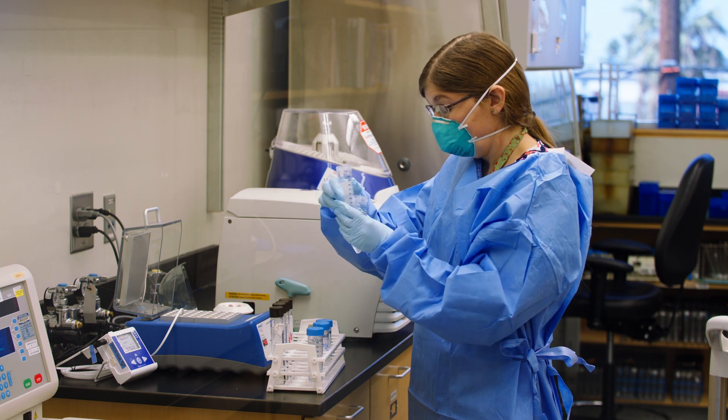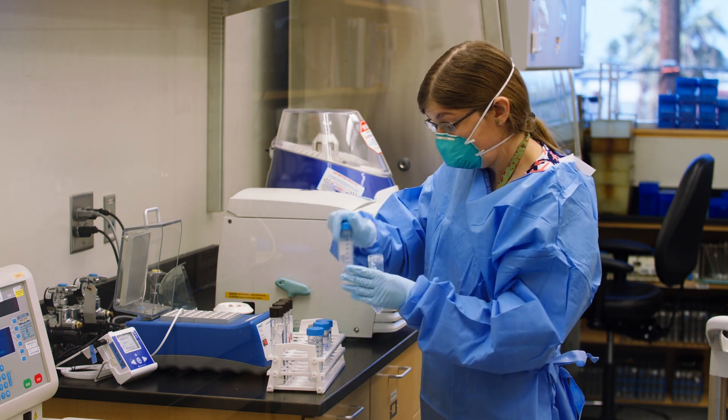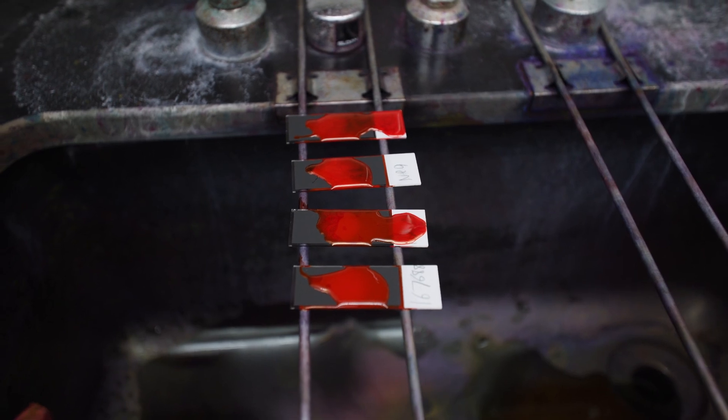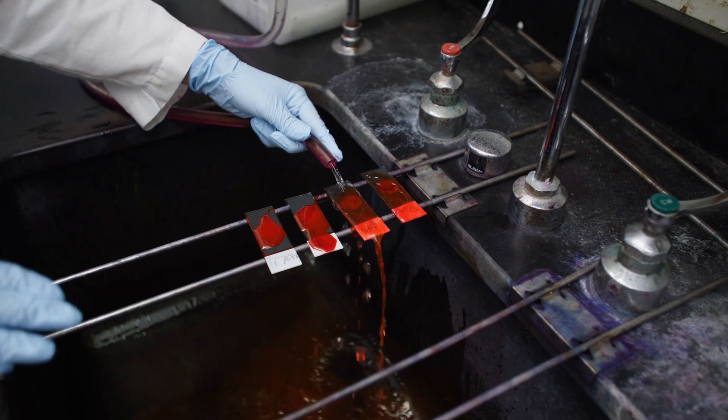Today, Bailey will perform three tests on these samples. A smear slide, heat fixed to kill any living organism, will stain the rod with a fluorescent dye.